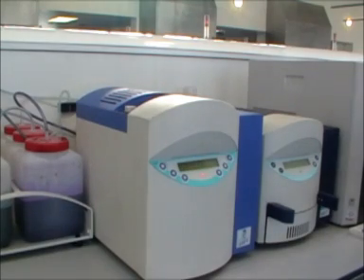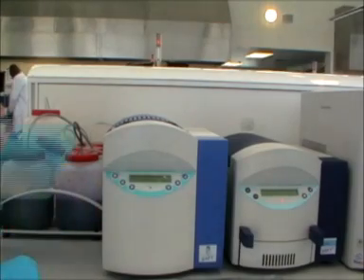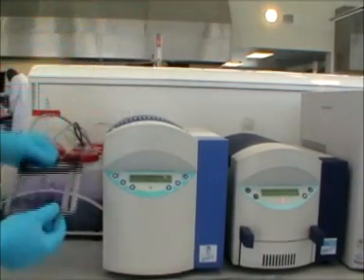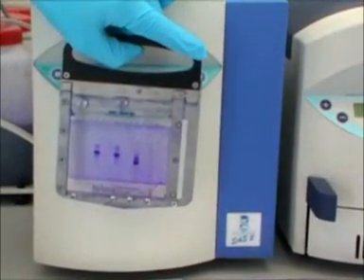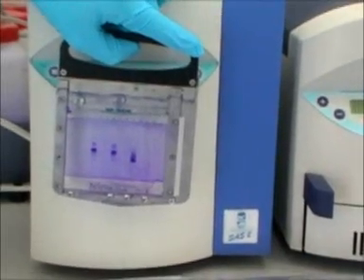Again the display indicates when the stain destain program is complete. The gel is then ready for visual inspection and may also be scanned to enable identification of weak bands and to obtain an estimate of relative band concentrations.